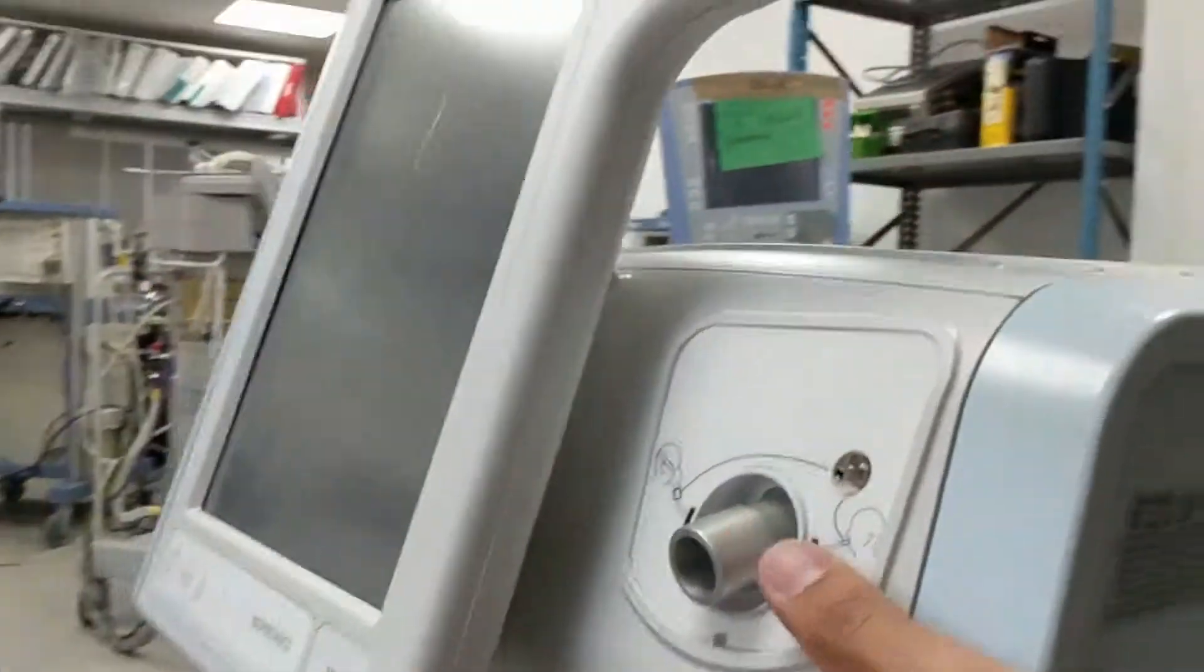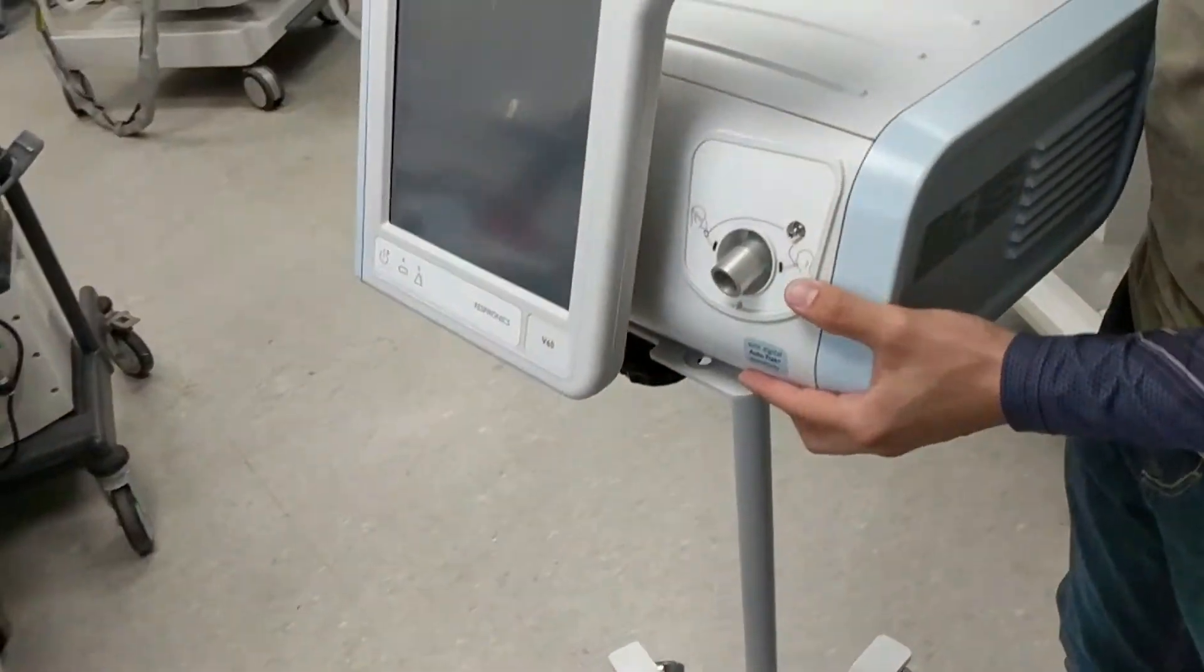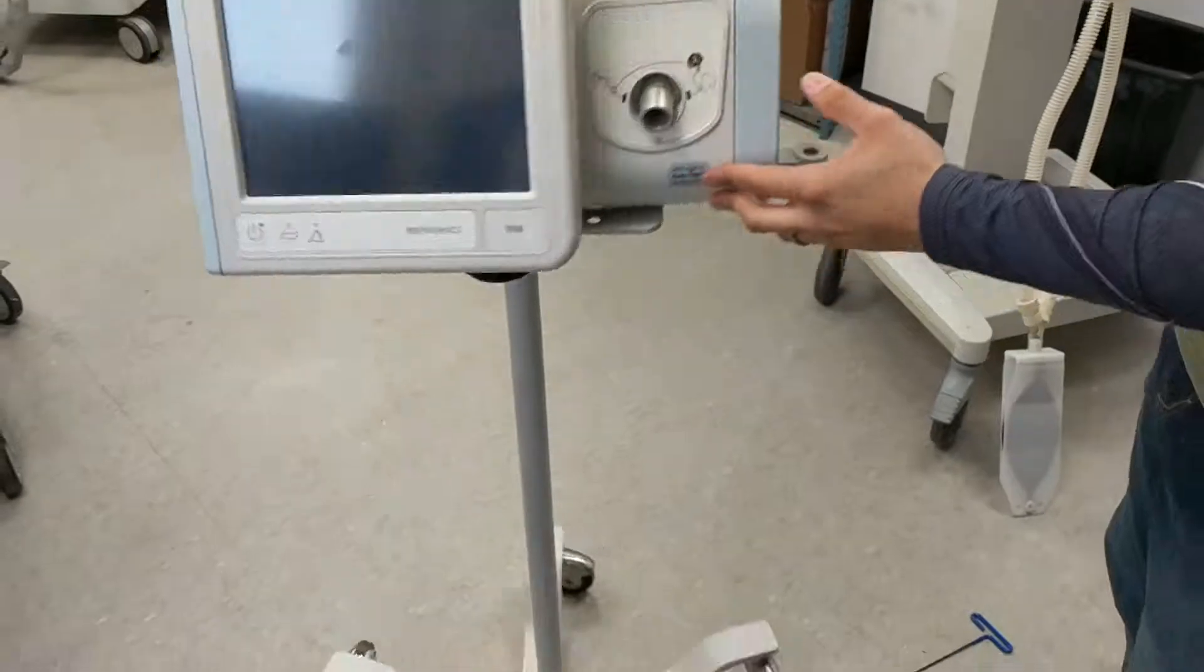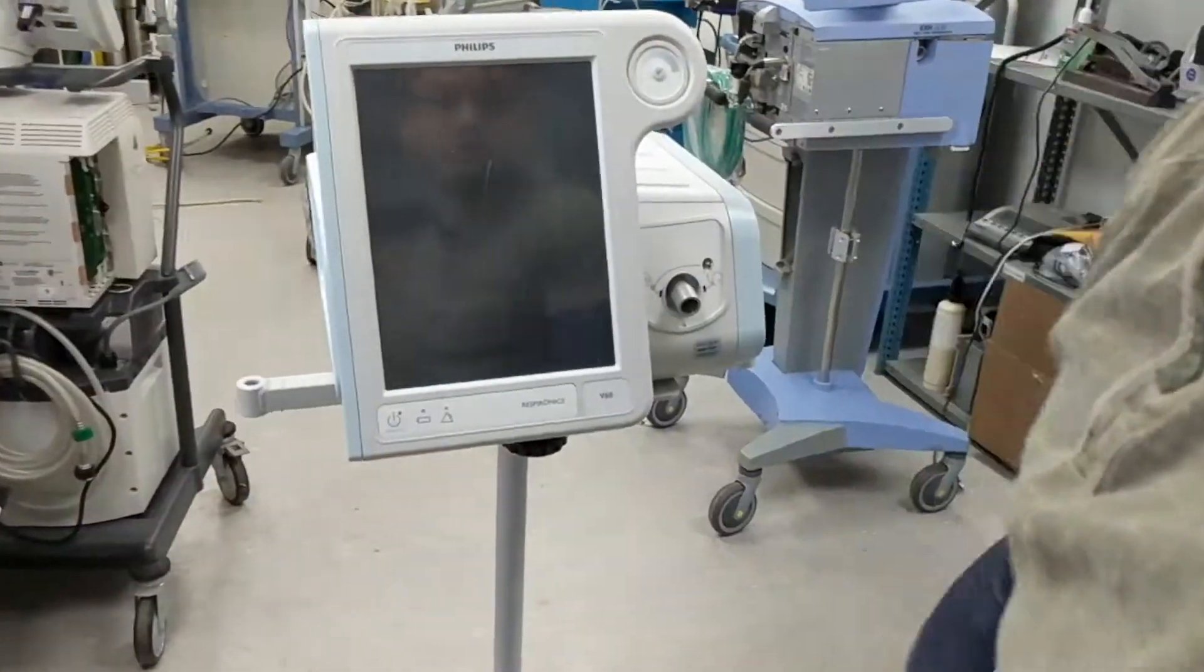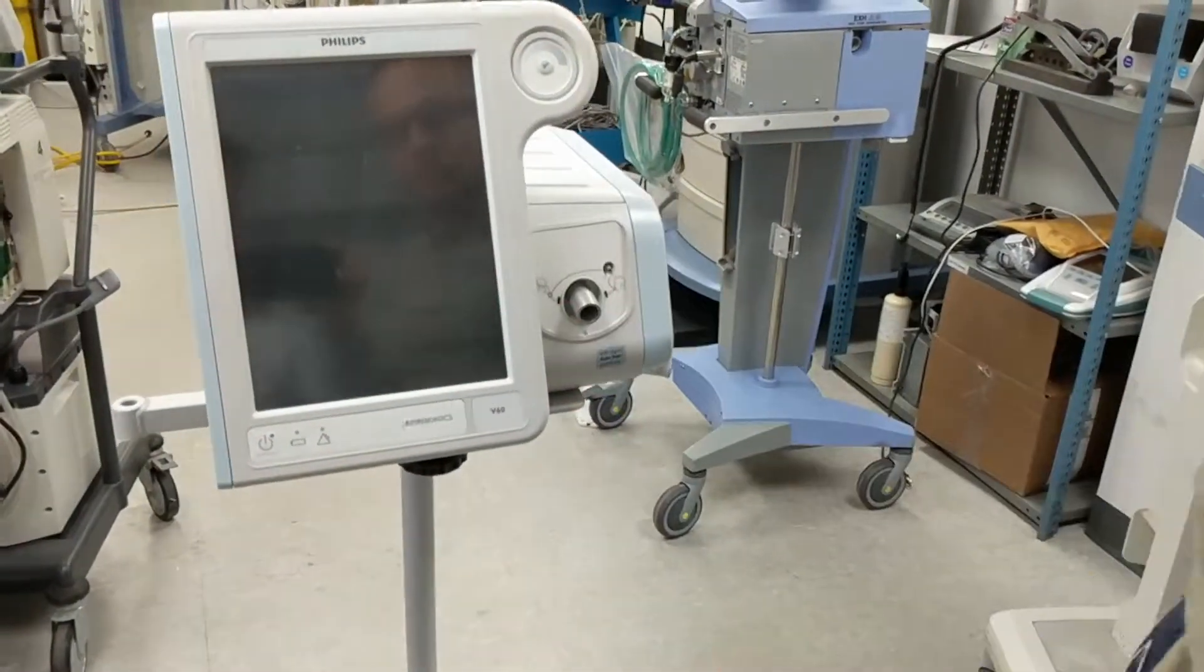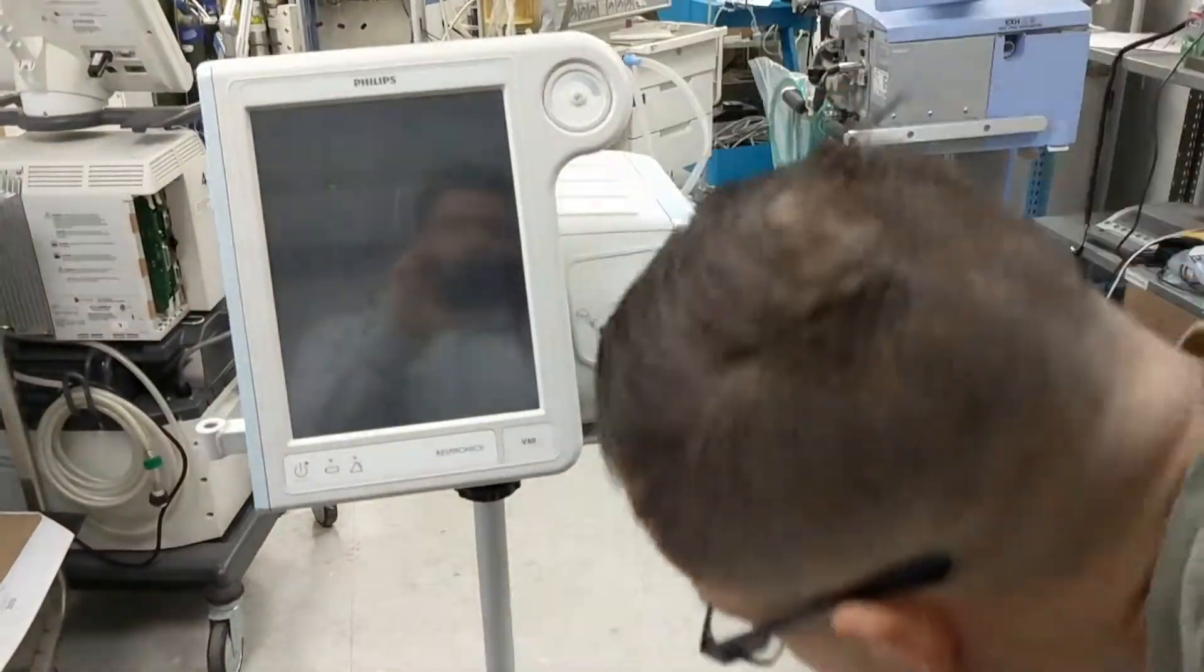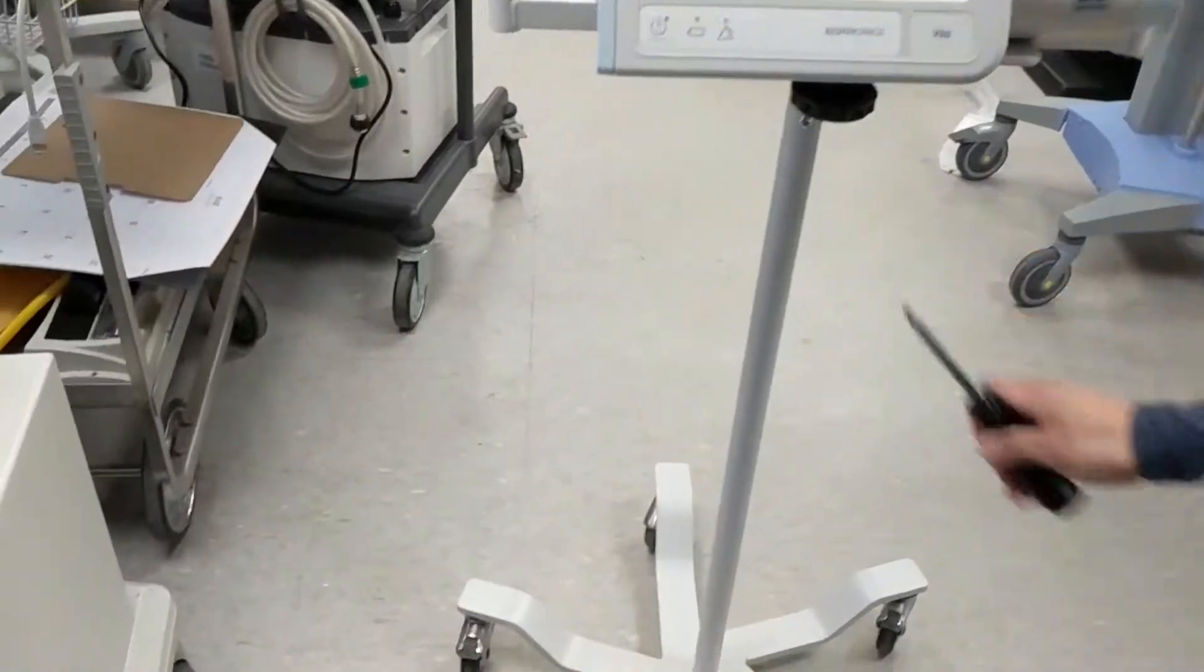So, as you can see, this guy's not coming off, and this is what it will look like at the end. There's two sections on each side, front screen facing this way. There's a notch that we mentioned earlier, right here.